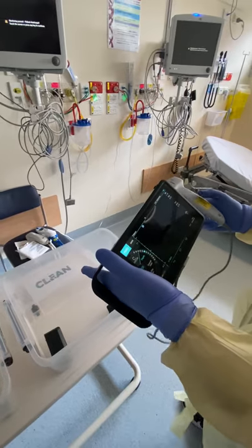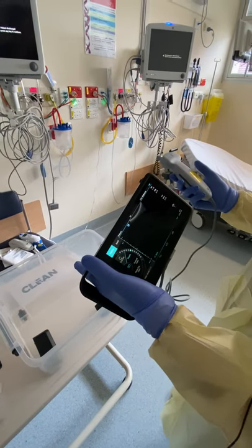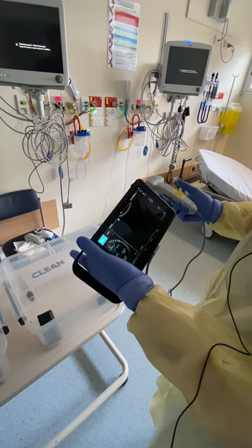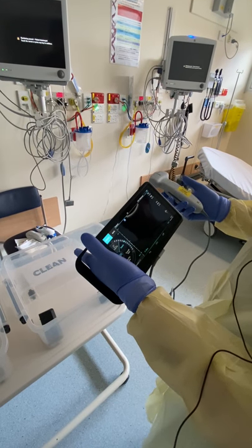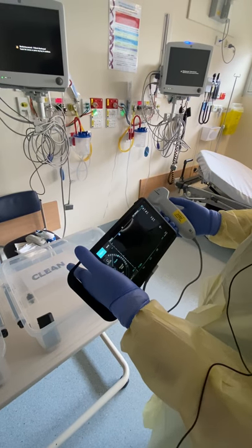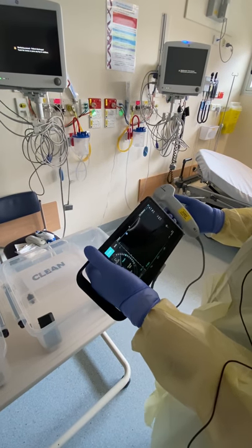You can then proceed into the room with your equipment and carry out your assessment. After scanning the various different zones that you need to do, we then move to what we do when we leave the room.